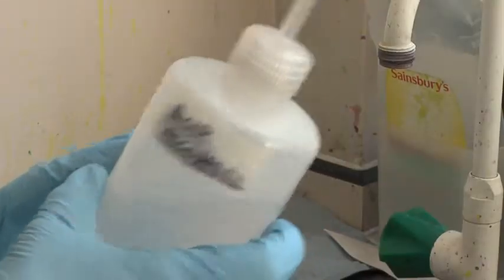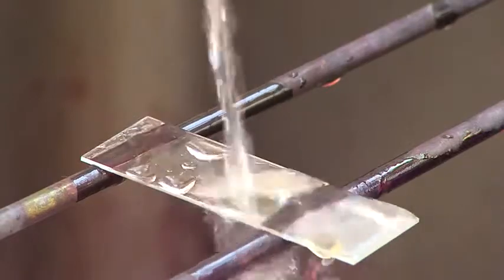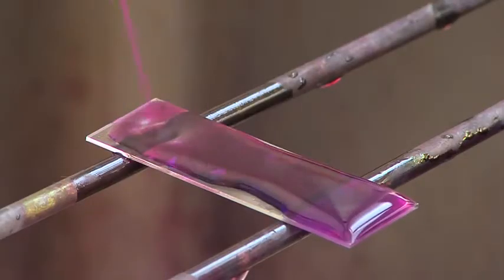and then adding 1% acid alcohol for 5 minutes, and washing again with sterile water. The slide is then counterstained with 0.1% potassium permanganate for 30 seconds. The auramine phenol penetrates the cell wall of the mycobacteria and is not removed when exposed to the acid alcohol. The acid and alcohol fast bacilli then fluoresce yellow-green when examined under a fluorescent microscope at a ×400 magnification. An acid alcohol fast bacilli positive smear is a very significant result for clinical patient management.